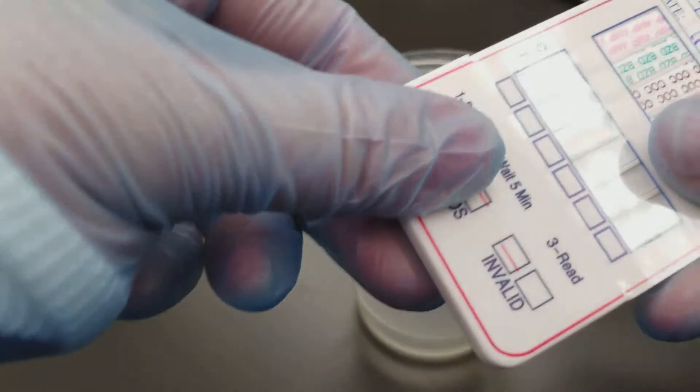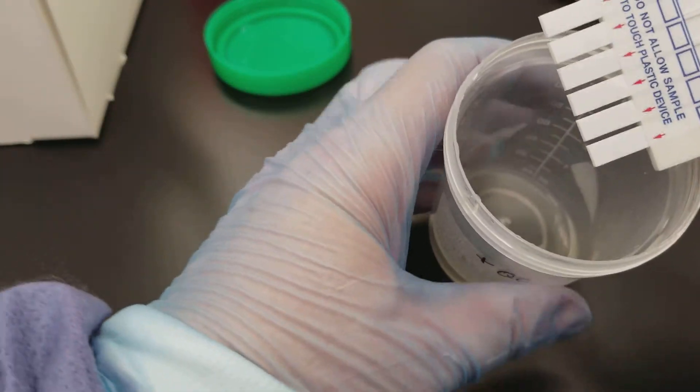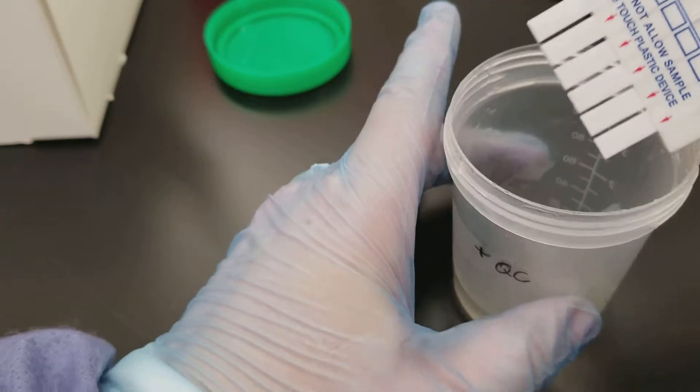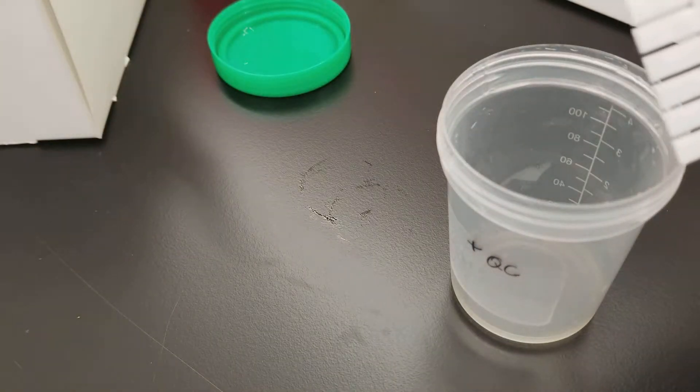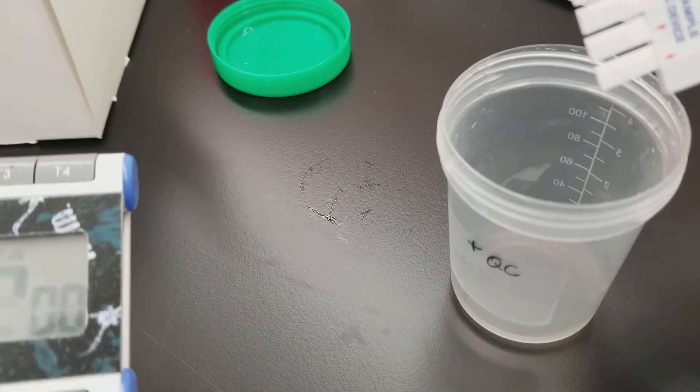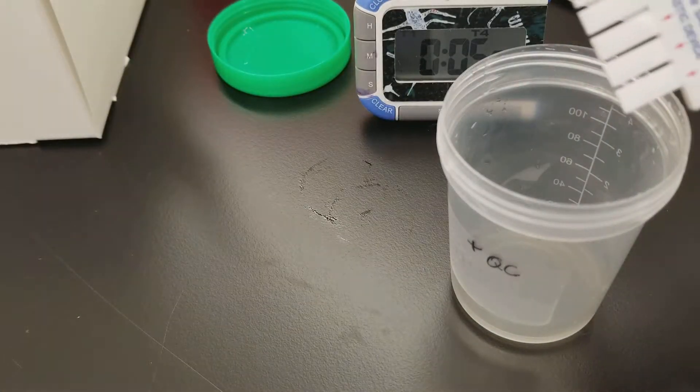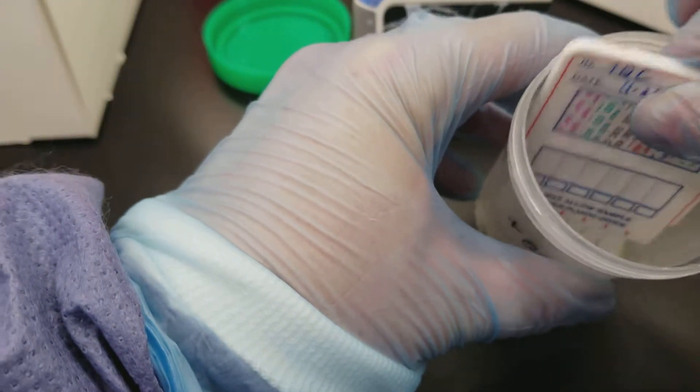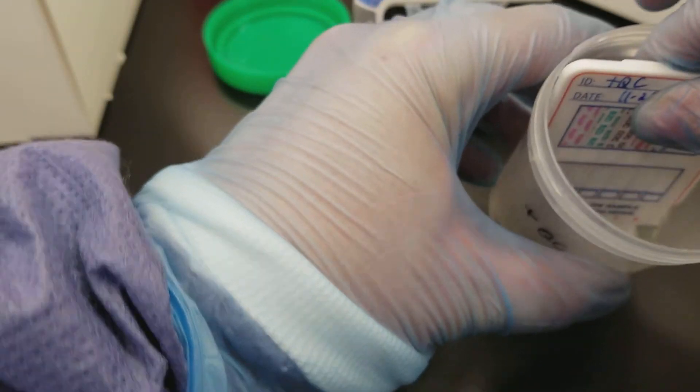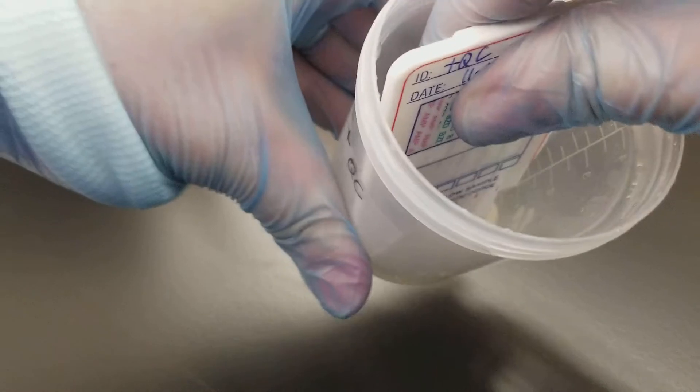I'm going to take the card cover off, and it says that we need to put it in there for 10 seconds, and then we're going to incubate for five minutes. It's okay to bend them because this is a very small amount in here.